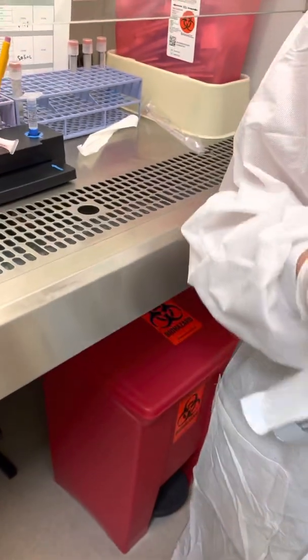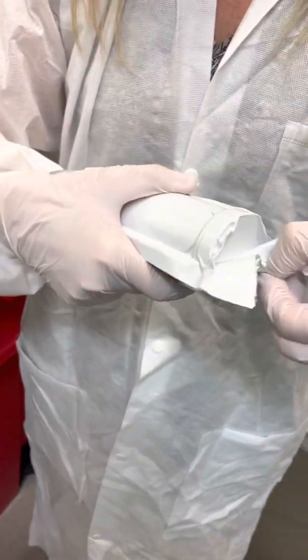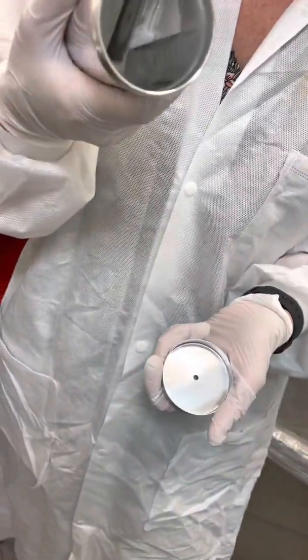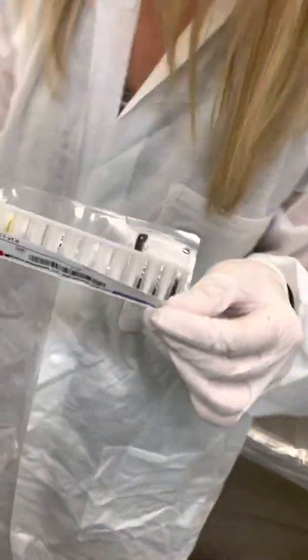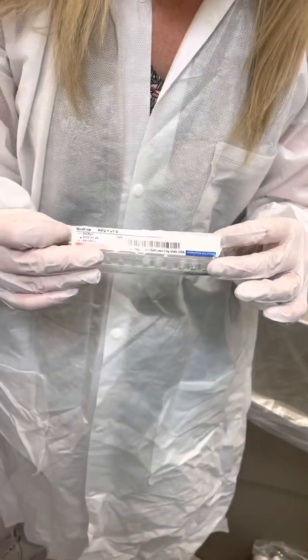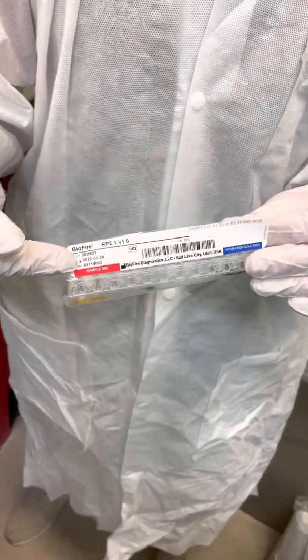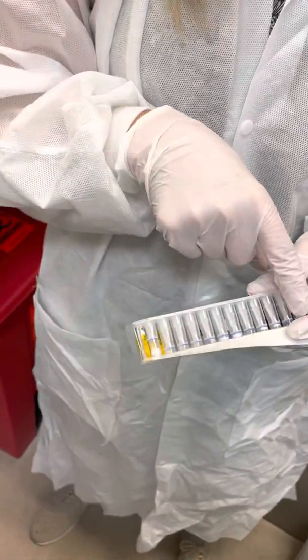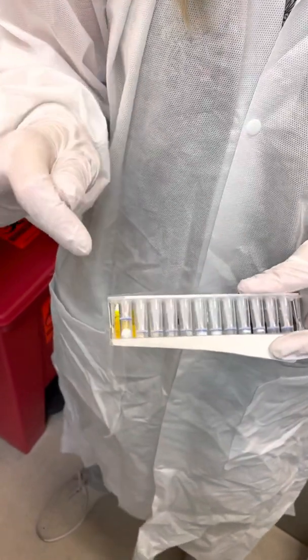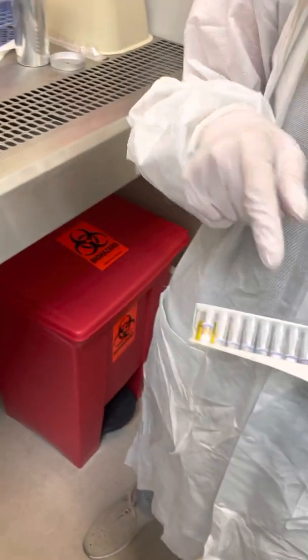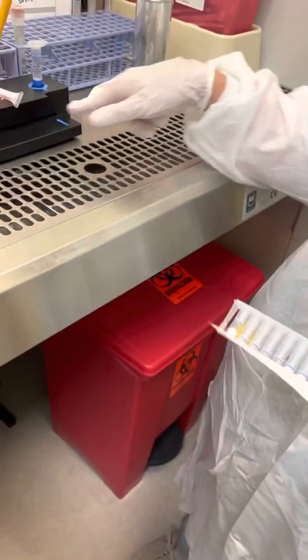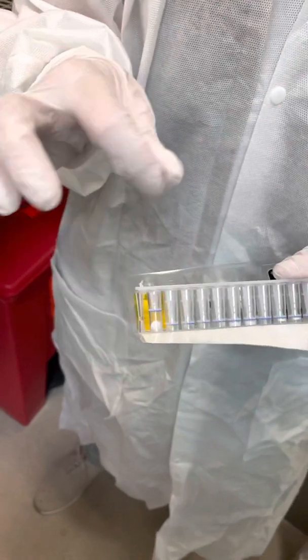Your pouch is vacuum sealed, so when you open it you're going to hear kind of a push. Open your can, inside is your pouch. There's a little plastic tab you can pull it out by. Here's your pouch, here's all the pouch information: lot number, expiration date. Notice in this portion you have some freeze-dried reagent. You're going to hydrate with this solution, so it's good to notice that this is there because you're going to make sure it looks hydrated.